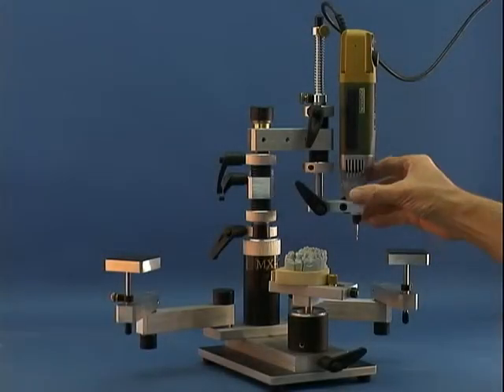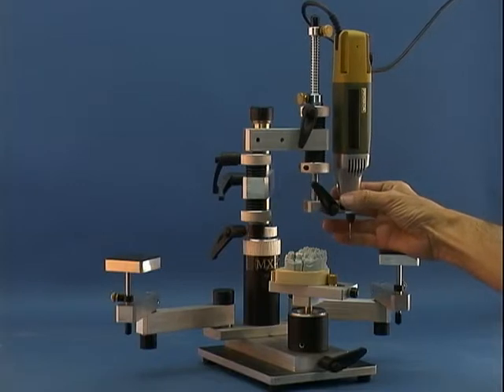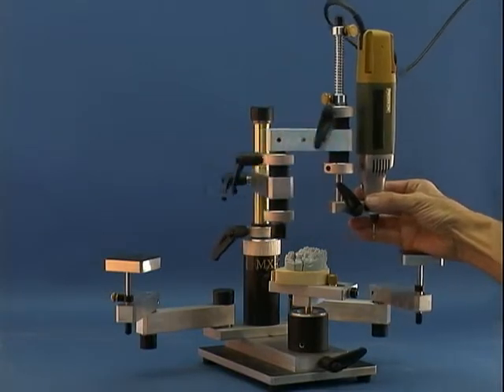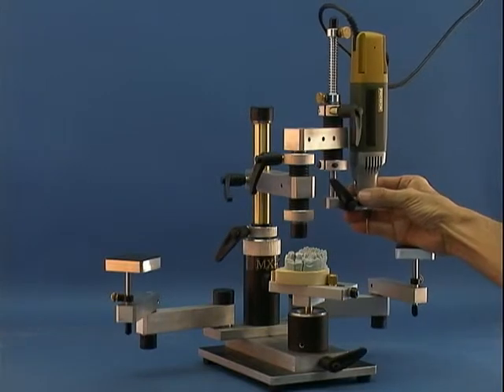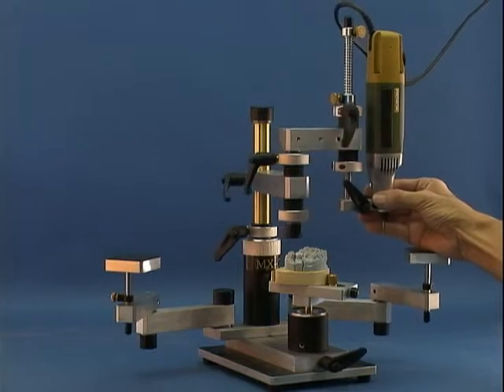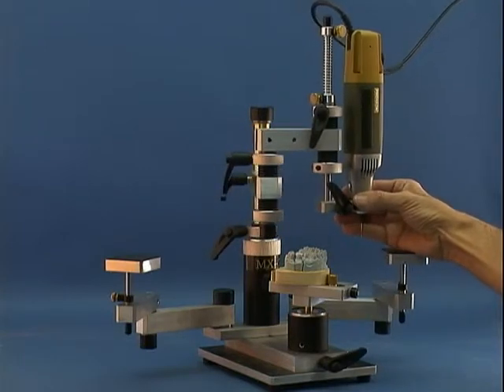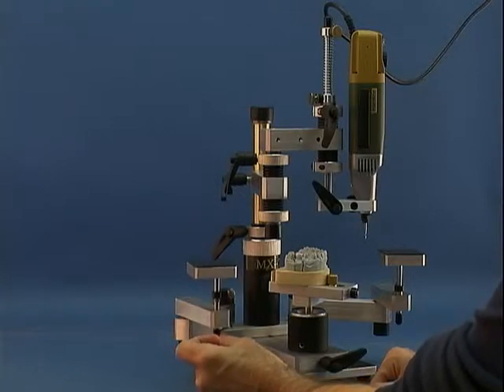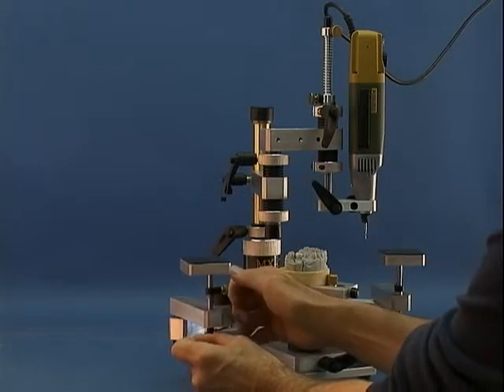The triple jointed handrest follows or tracks the movement of the triple jointed motor arm. Whether side to side, back and forth, or in a circular motion, both right and left handrests are easily adjusted for varying heights.